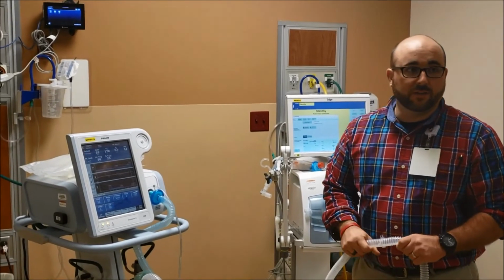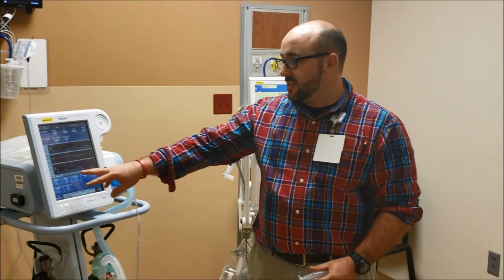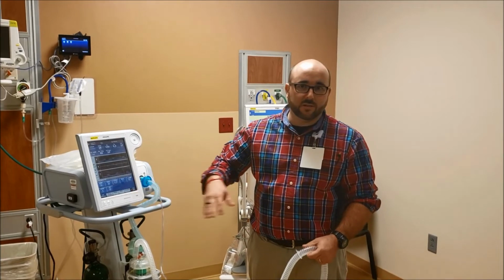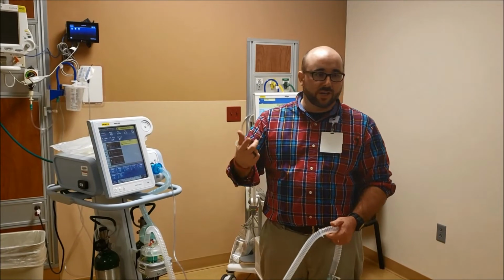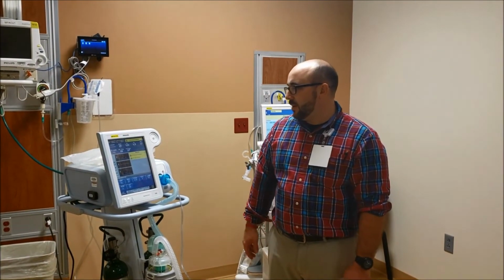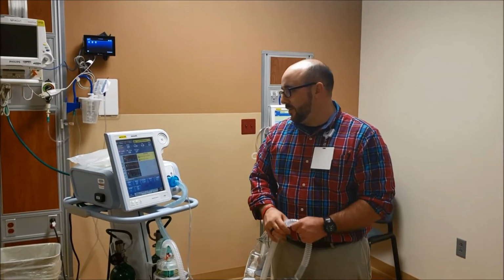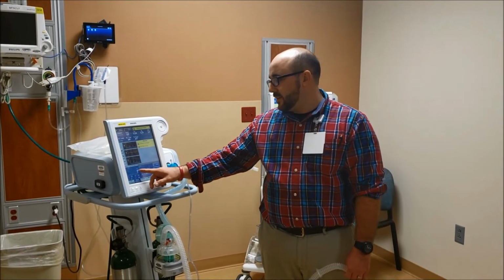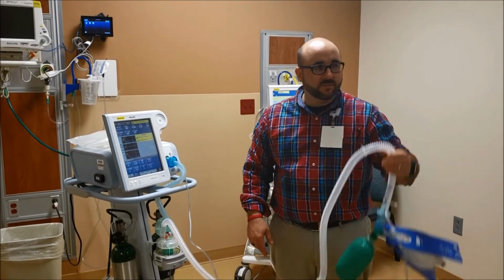Now what I'd really like to do is have one or two of these machines that are set up just for PACU, so that when you turn it on, ST comes up at 12 over 6. So you don't have to change it at all. And then if you get AVAPS, it'll come up at all the AVAPS settings that are usual, you'll change the volume, change the FiO2. So, low tidal volume, so for some reason we have tidal volume come back at 118, which is low because our alarm setting is 150. It's because we're breathing into these non-compliant lungs here.